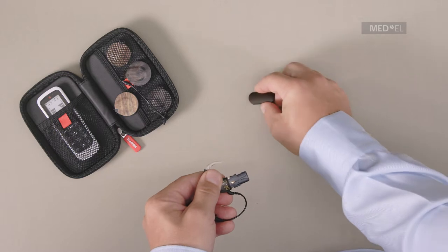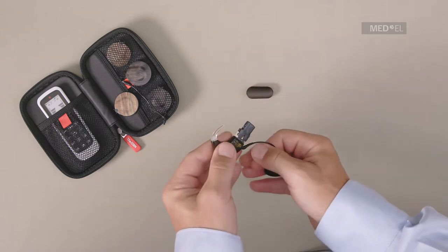Then slide the cover off the battery pack. Gently pull the cable out of the socket.